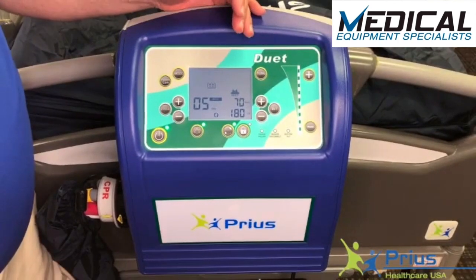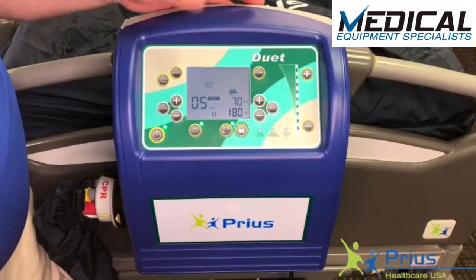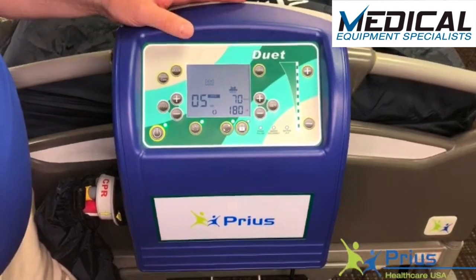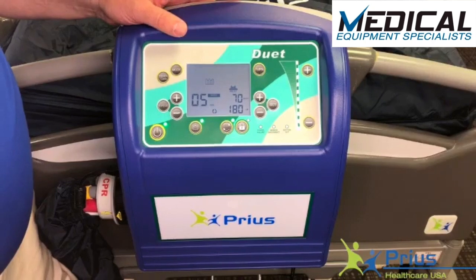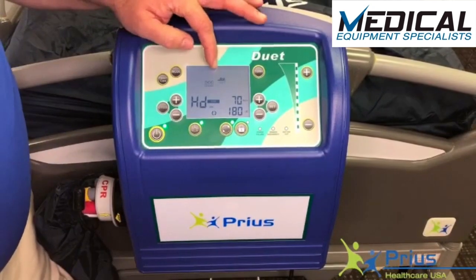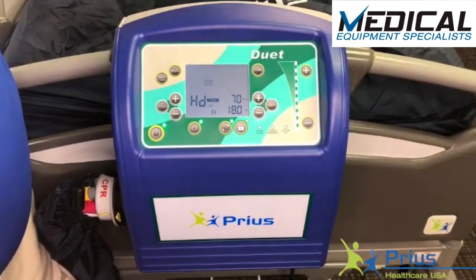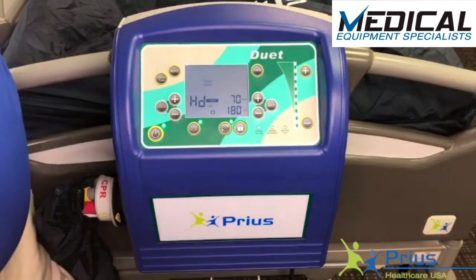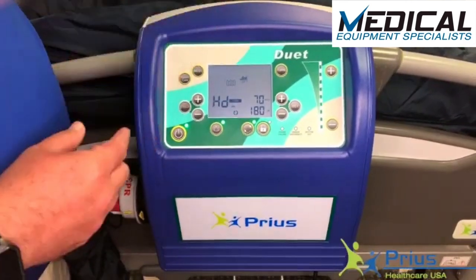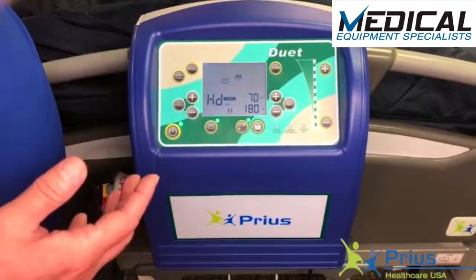The final therapeutic feature is lateral rotation. We can do both continuous lateral rotation or a turn and hold for turn assist. To engage the turning function, hit the turn button on the right-hand side of the LCD screen. The first indicator is a left turn, which means it'll turn to the left and hold. The system defaults to the hold feature, meaning it'll turn to the left and hold that 40-degree turn in perpetuity.